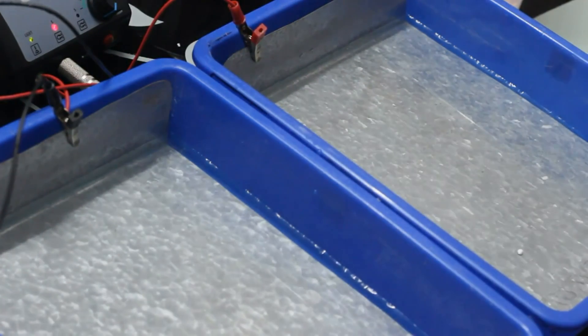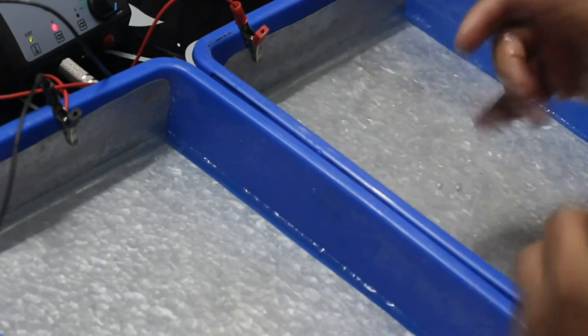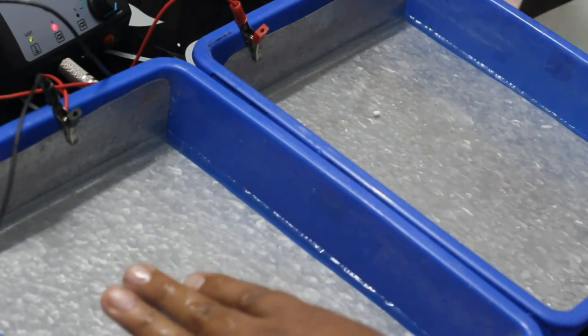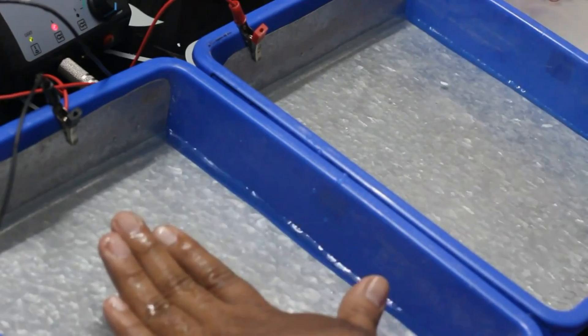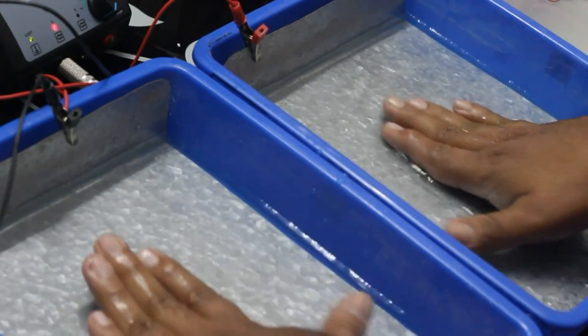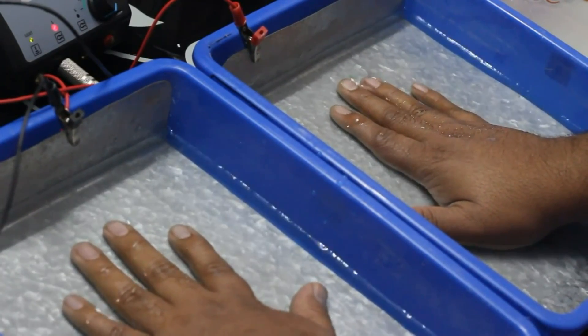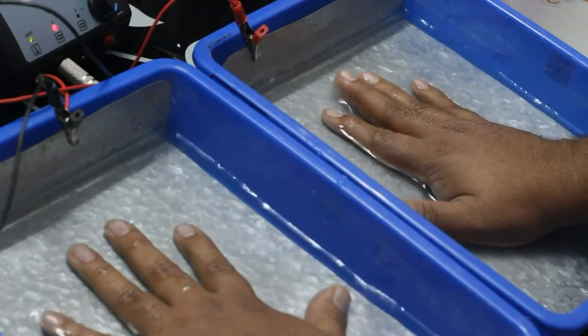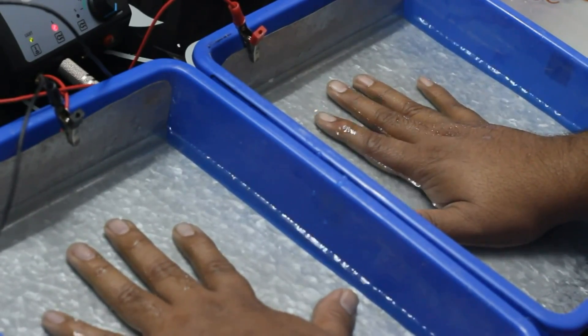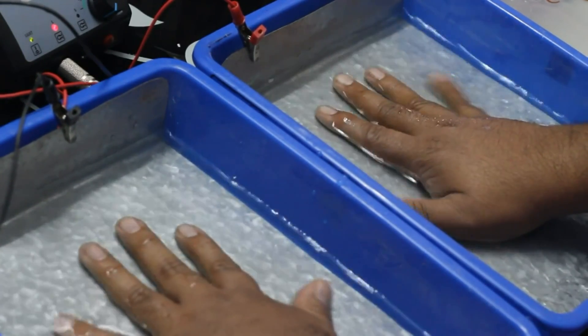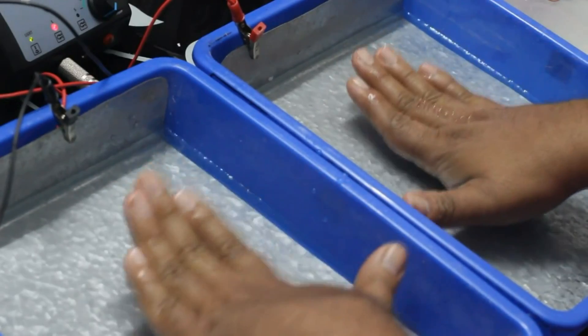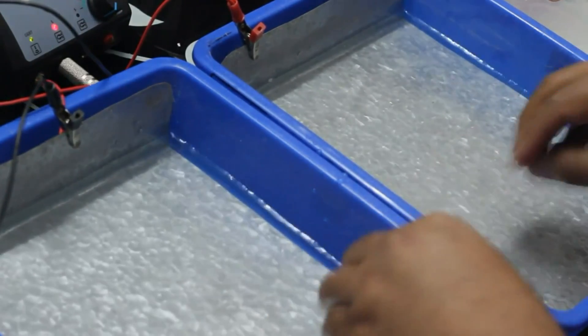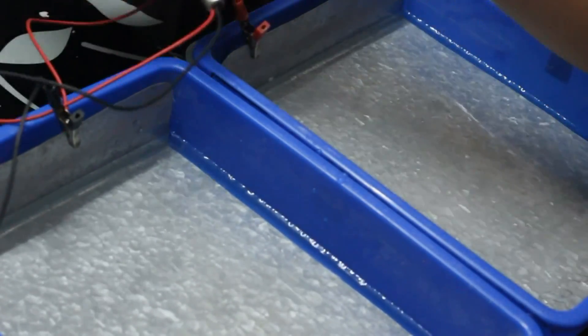Now, the clips are connected. It is a very easy procedure. The maximum intensity is 18.5. I'm going to directly dive in. I'm going to directly put both of my palms into 18.5, which will be a little bit uncomfortable, but not more. Once you know how to put both of your palms into the trays, you can directly dive into 18.5. Or, if that is very difficult, then you can put the device on the floor and move the button from 1.5 to 18.5. You know, leg fingers are there, right? Heels, leg fingers. You can move the intensity with that also. Then 18.5, once you tighten all the fingers, you can put on 18.5.